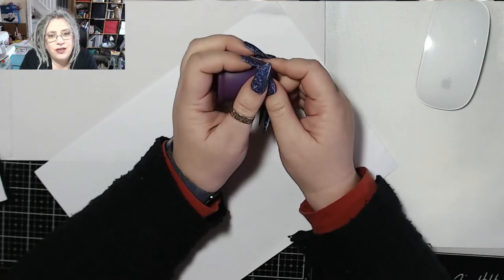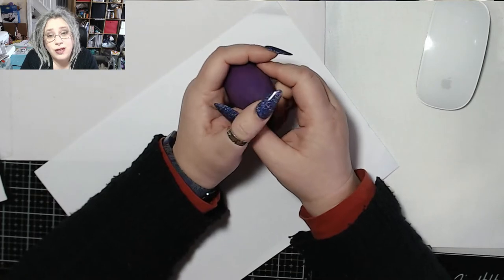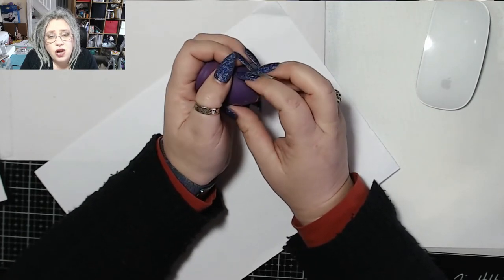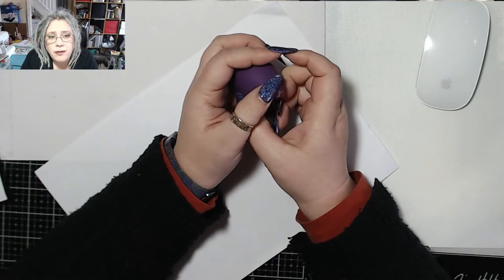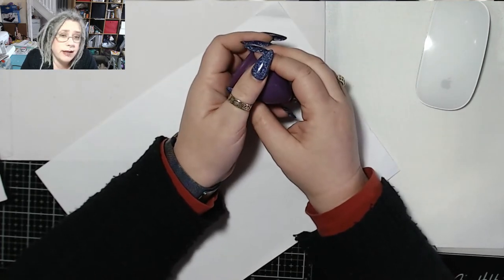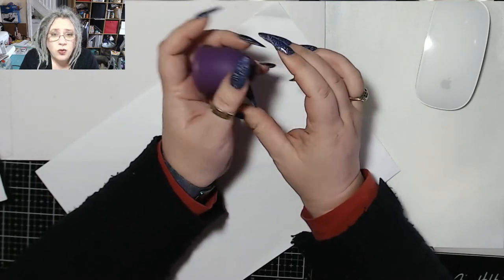Give it a try, do try them. If you're not squeamish, there are trading groups for cups, because some people go through several before they find what is called their 'Goldilocks' — the cup that works best for them. This is a Tulip cup. I found it in a Facebook advert — they were advertising a double pack for quite a good amount, so I bought one for me and one for my daughter. She didn't get on with it and she's gotten rid of hers. She's got a little mini one — I think it's called a mermaid cup — and it's very small, but her cycle's lighter than mine. This also came with a reusable pad, which I personally don't like, but it's handy to have pads while you're learning to get used to your cup.